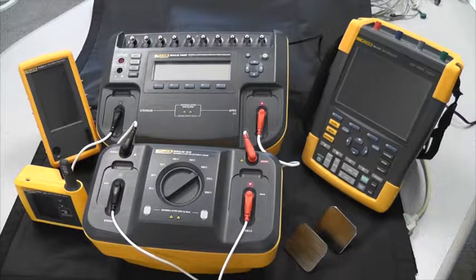You can expand this testing even further by using the 7010 external load accessory. When you have a new defibrillator and have to complete an incoming inspection, this can be very helpful by testing different loads that represent the different thoracic resistances of all patients. That way you know that your product is ready to test everyone that comes through the door.